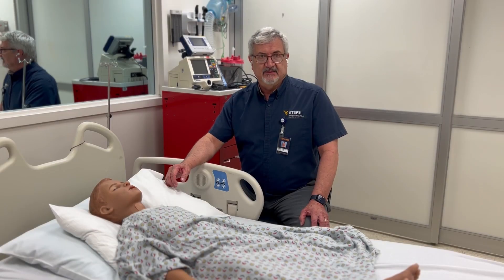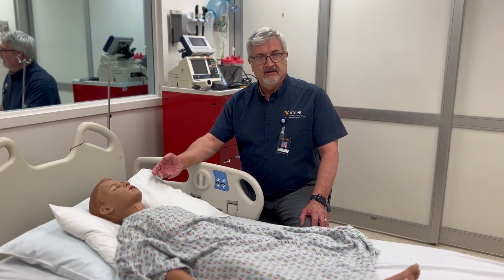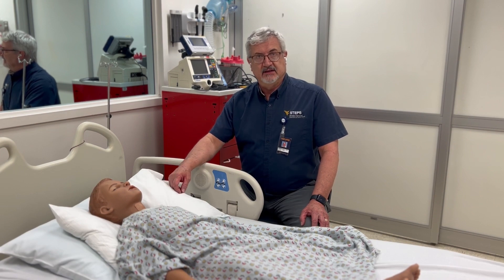My name is Rusty Durham, the lead simulation specialist here at STEPS, and this is one of our high-fidelity simulators.